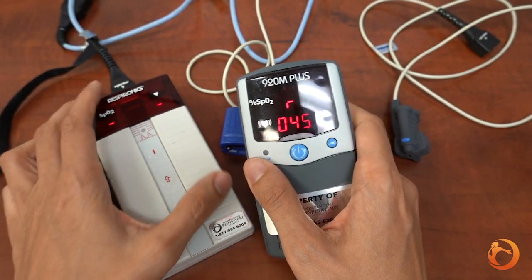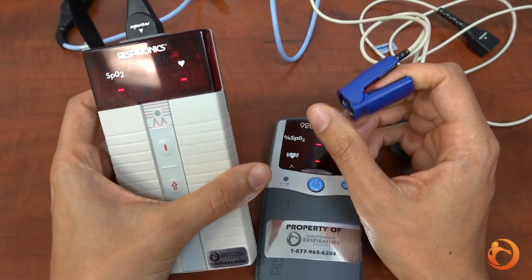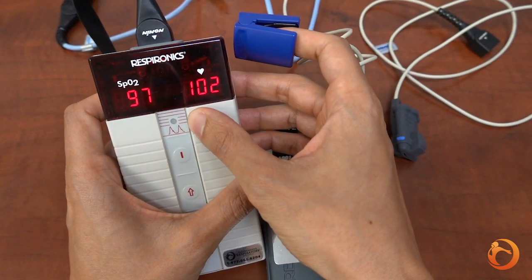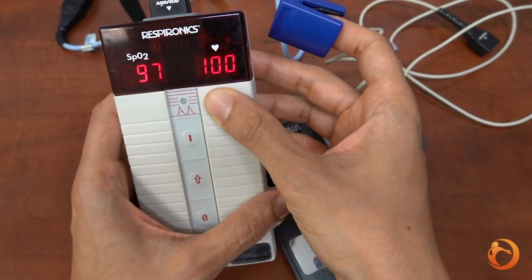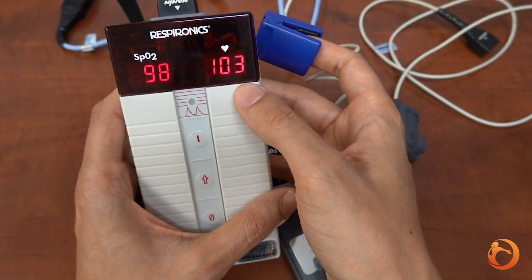The LED light on the top of the button will start flashing as it seeks for a signal. For a good signal you will see a green light here. Eventually the display should show your oxygen saturation on the left and your heart rate on the right.